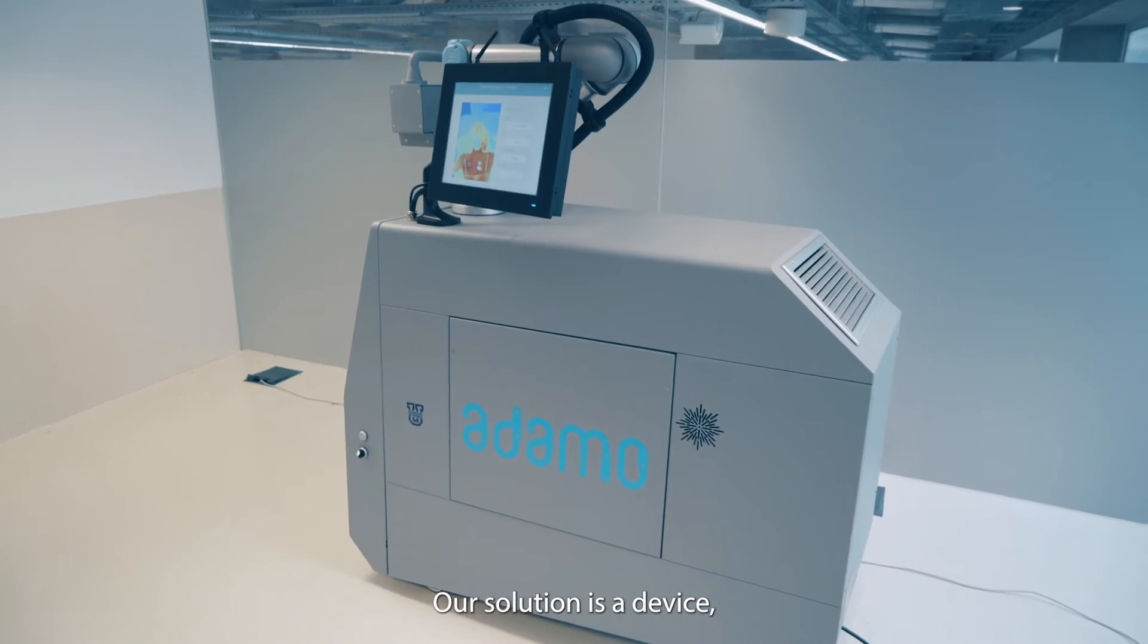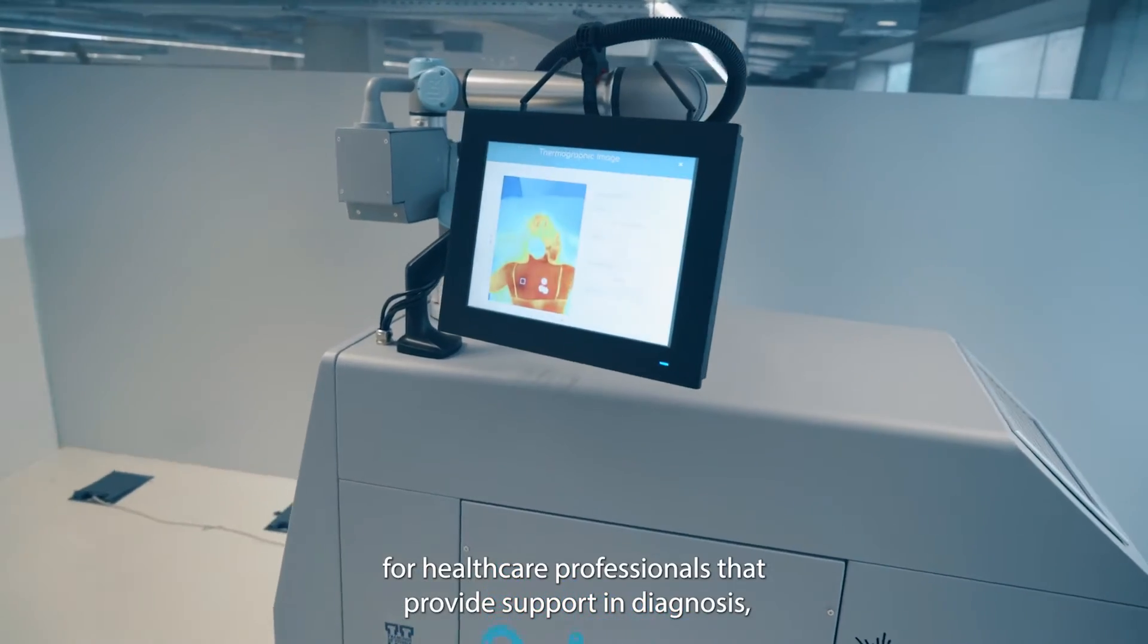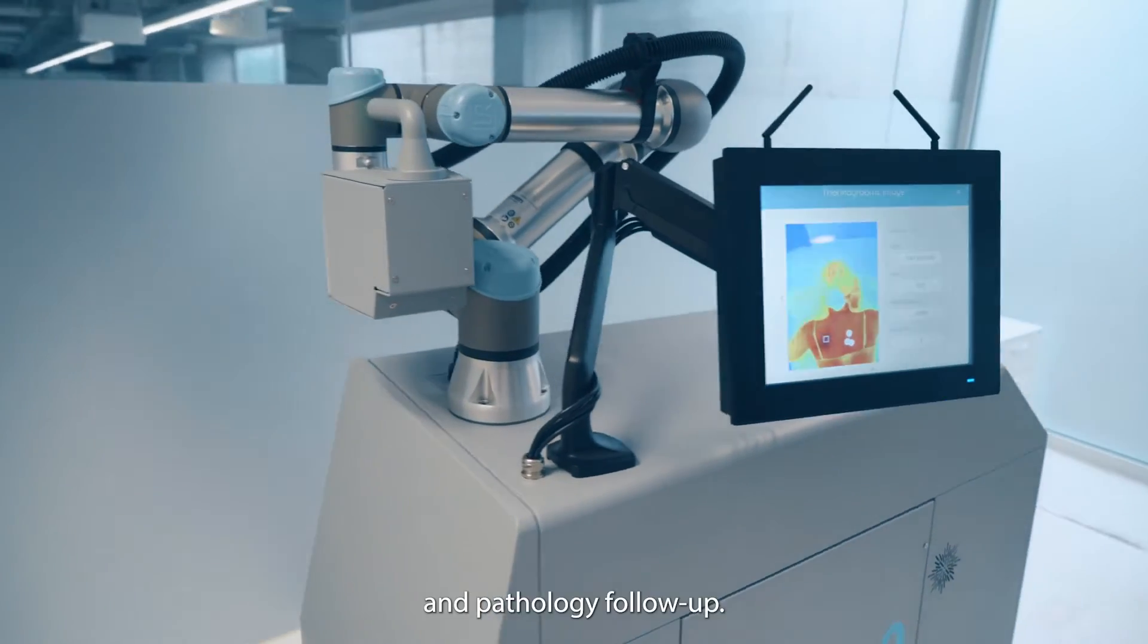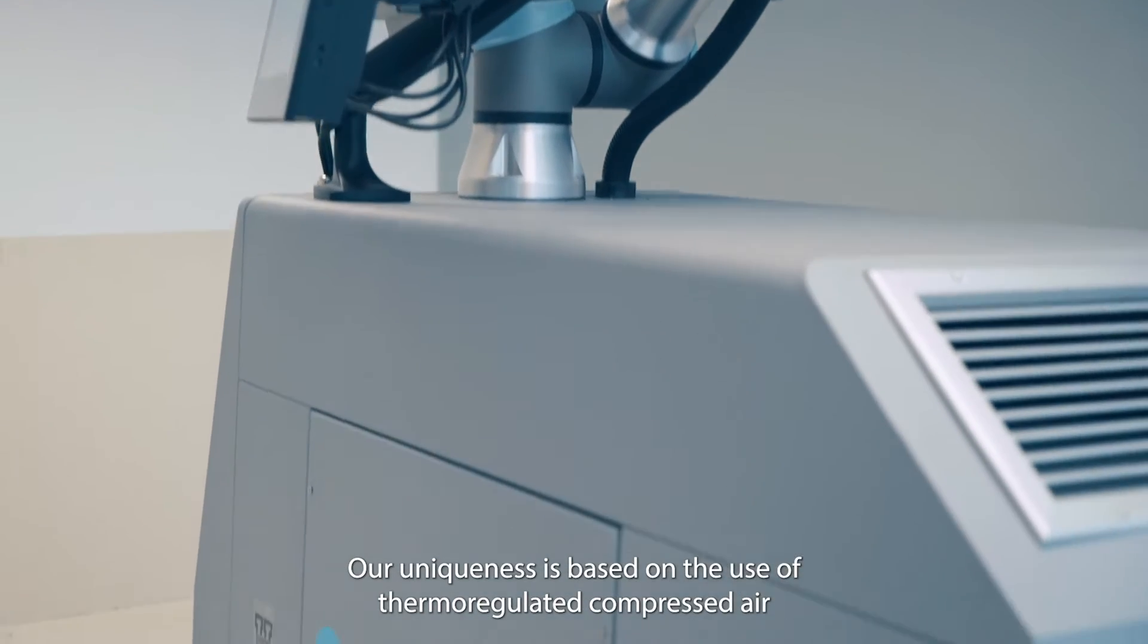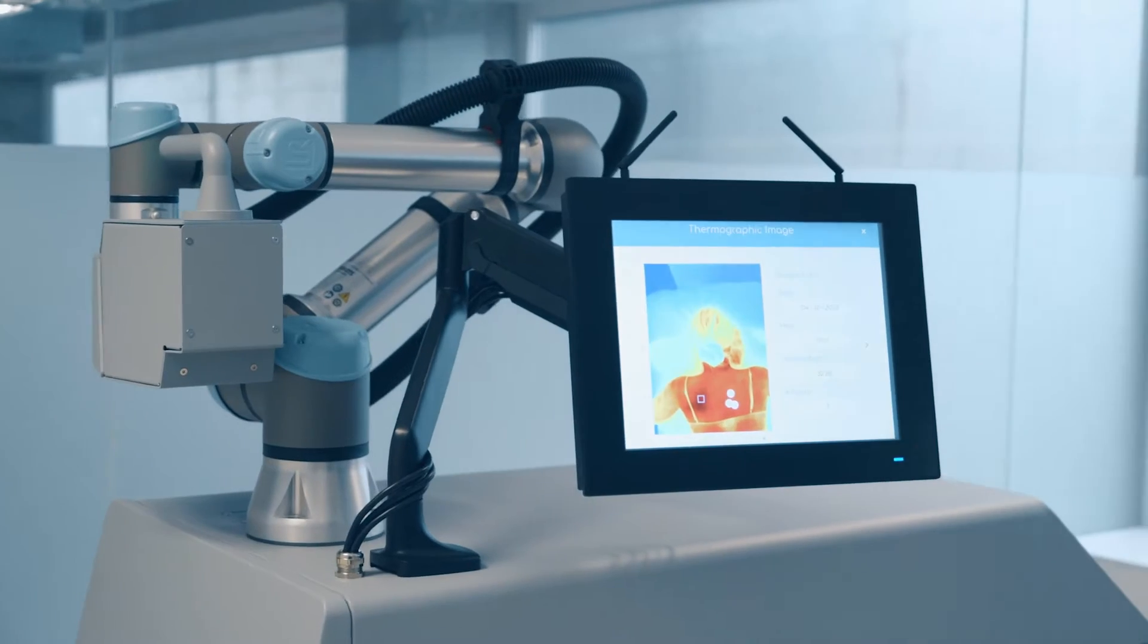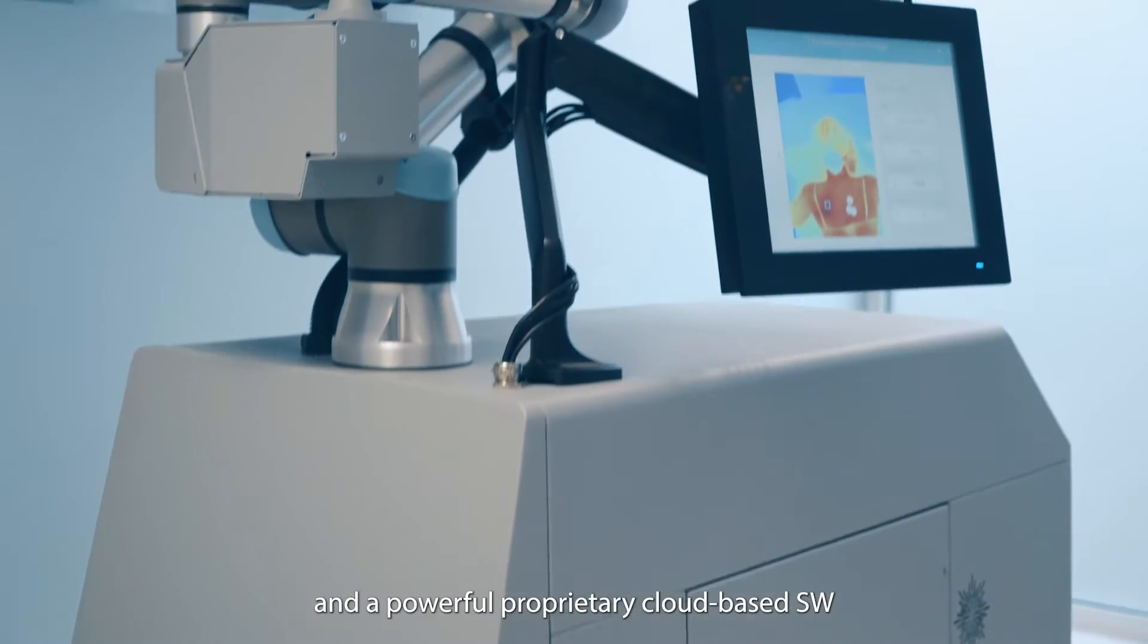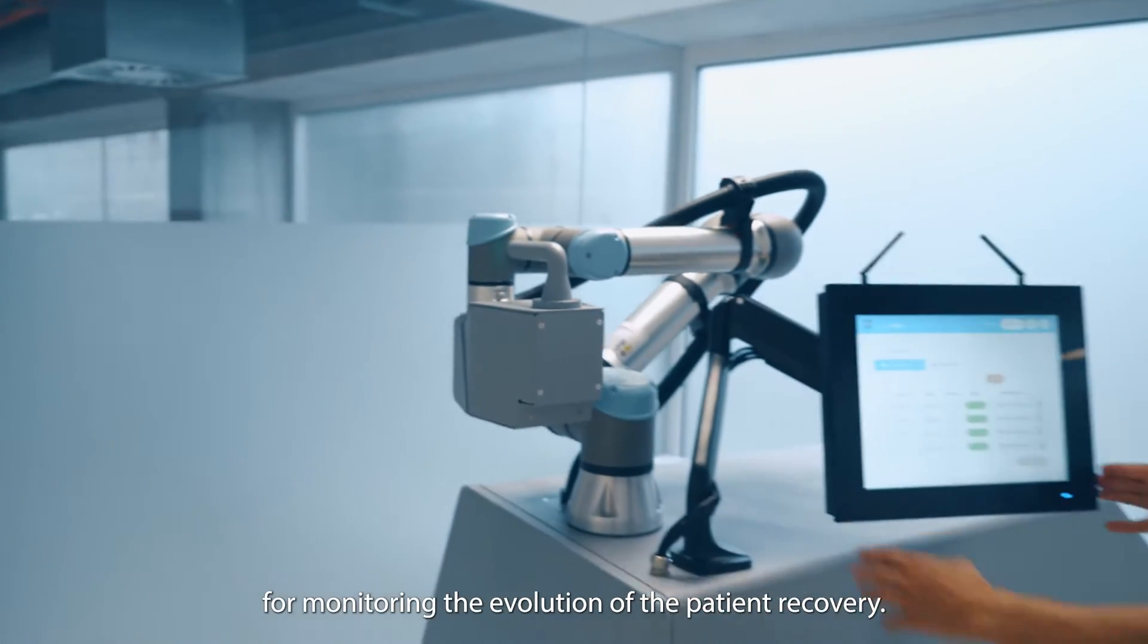Our solution is a device created by a physiotherapist for healthcare professionals that provide support in diagnosis, treatment and pathology follow-up. Our uniqueness is based on the use of thermoregulated compressed air to deliver the treatment, a thermographic camera for support in diagnosis, and a powerful proprietary cloud-based software for monitoring the evolution of patient recovery.